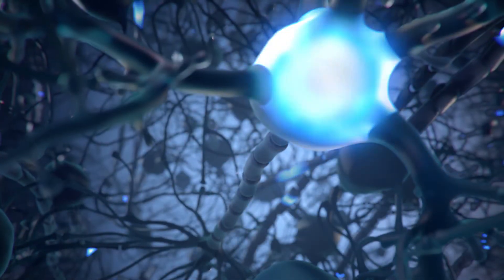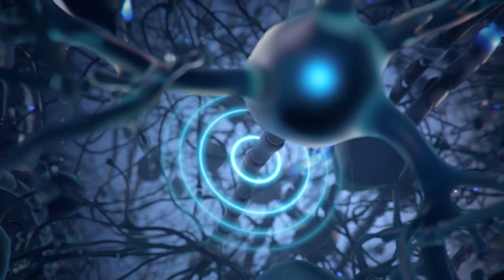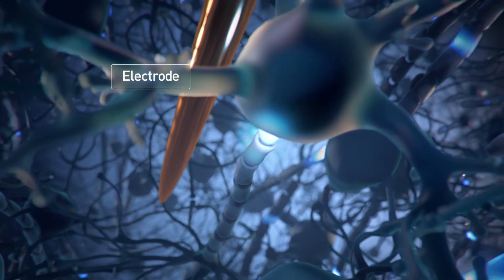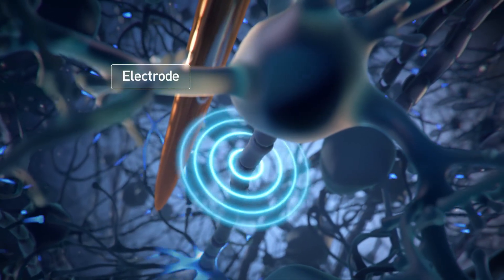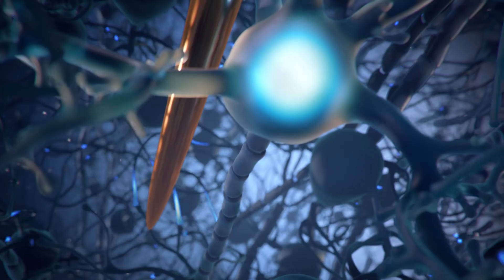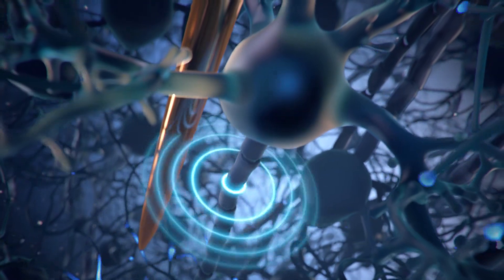Action potentials produce an electric field that spreads from the neuron and can be detected by placing electrodes nearby, allowing recording of the information represented by a neuron.